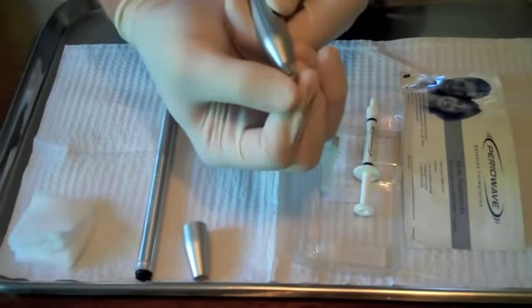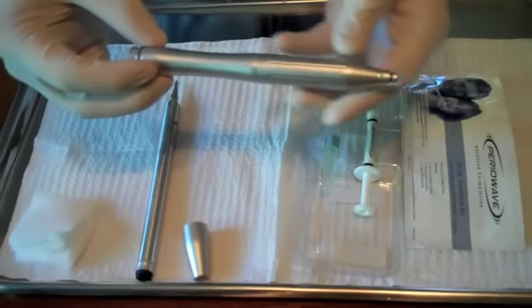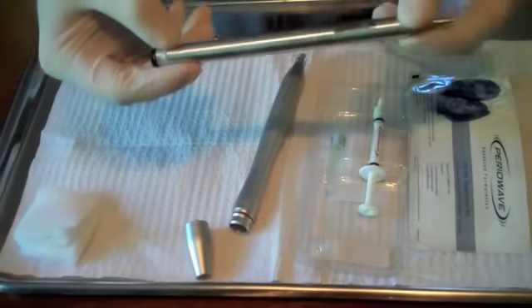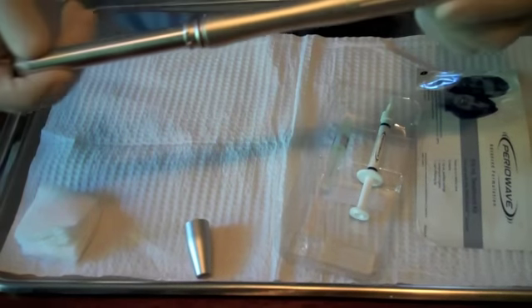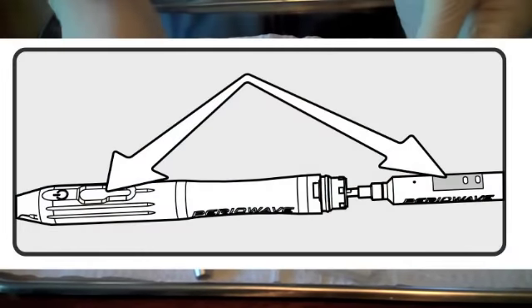Putting this on before inserting the laser module helps ensure that you maintain the seal from the patient's mouth to the inner laser module. The batteries are already within the unit. You simply slide the laser module into the outer sheath, lining up the window at the front end. It will only go in one direction.